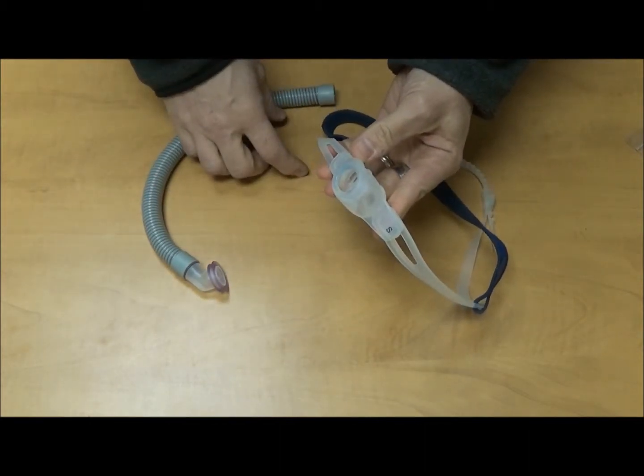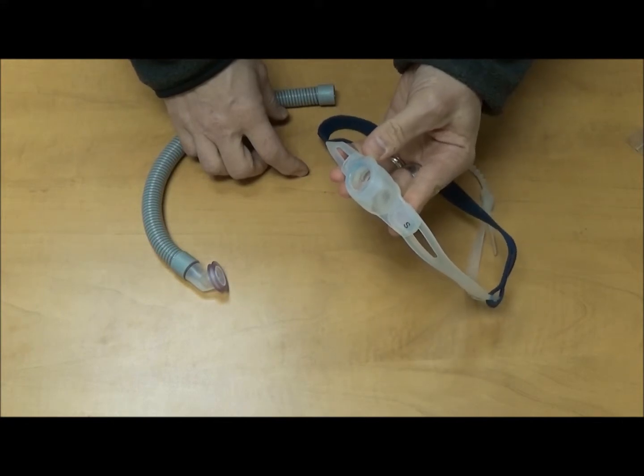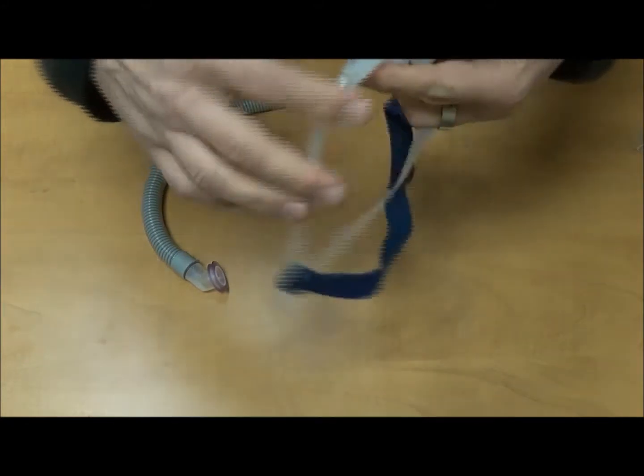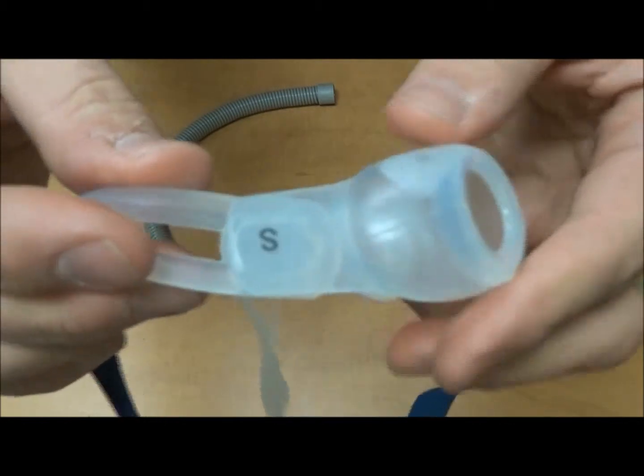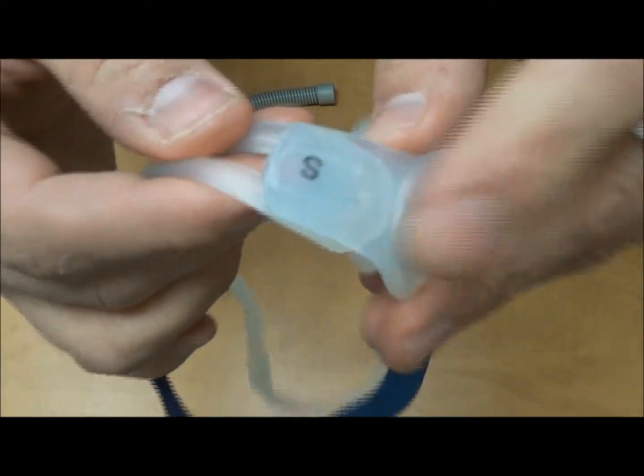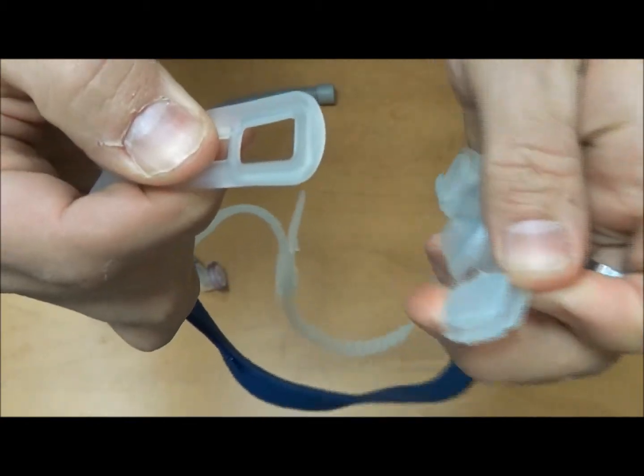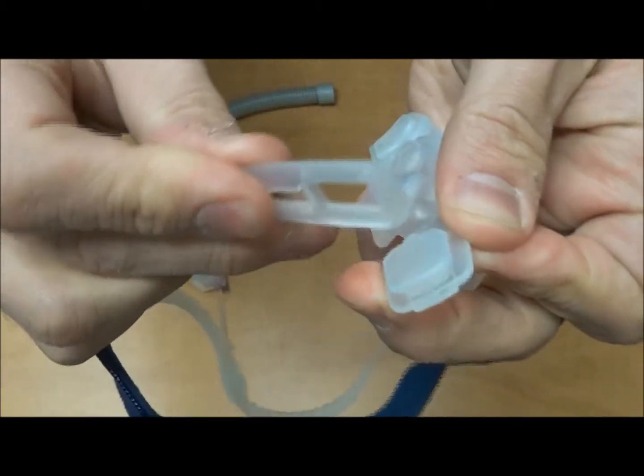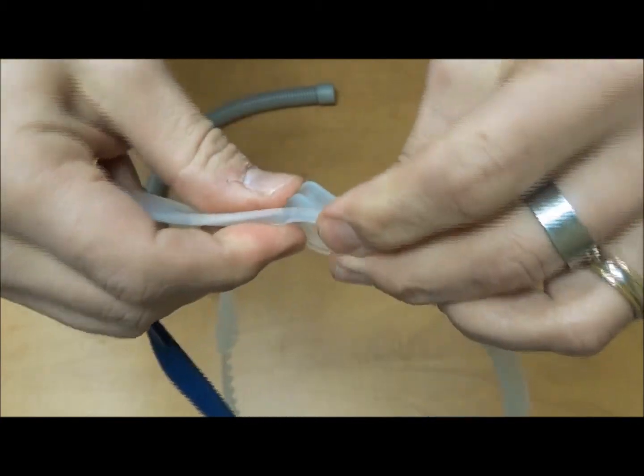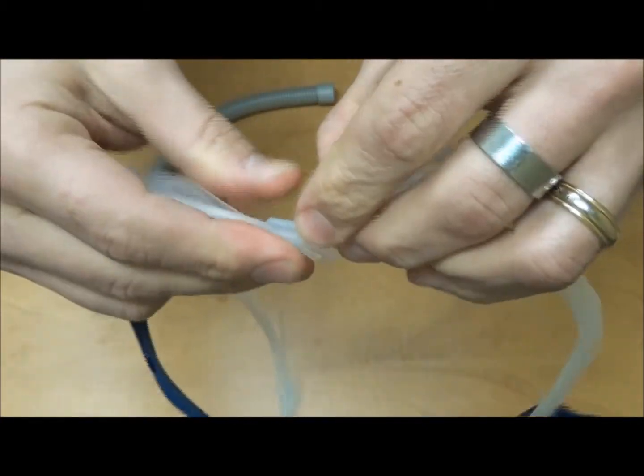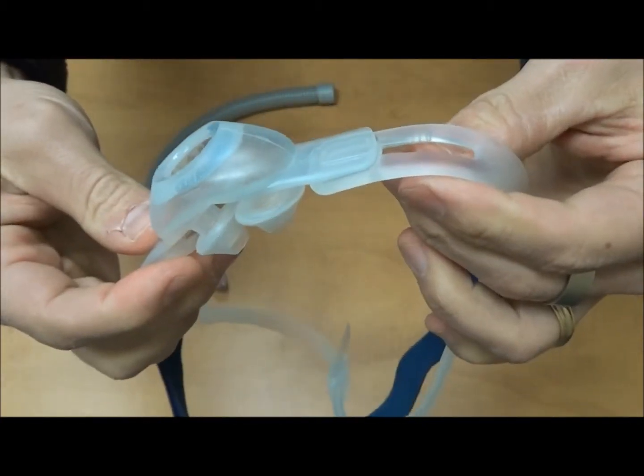So all I've done here is that I've changed from medium to small. Let's bring it to the camera so I can show you how I did it. What happened here is I peeled this out of that open square, and I took that square and I just slipped it inside that open square. I did the same thing for the other side.